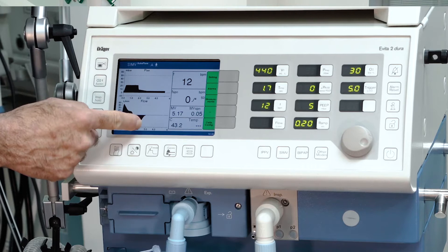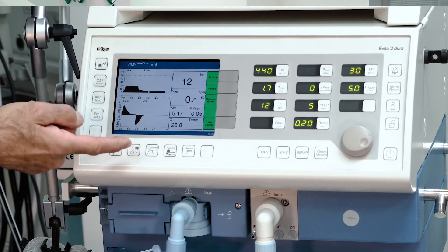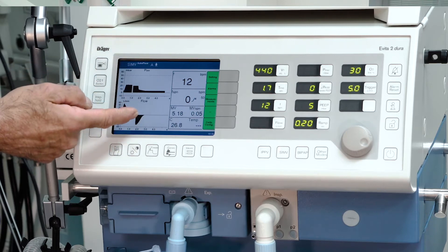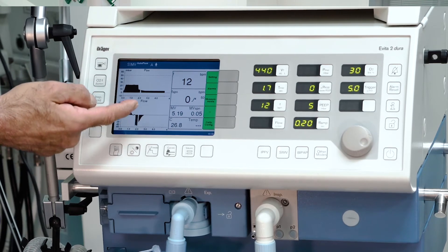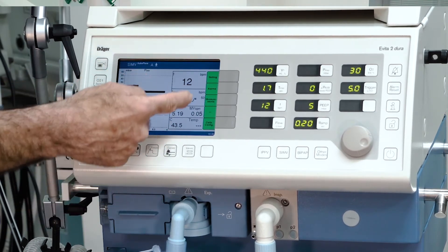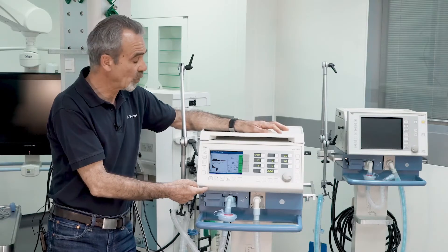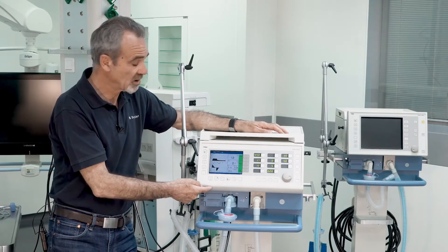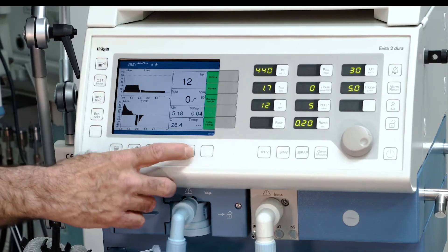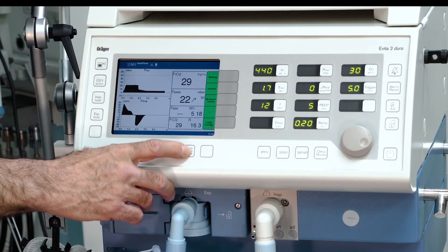Below you have your curves which could be, depending on the configuration, pressure, flow, volume, and if available CO2. Beside that you have your measured values which are available in three sets. You can toggle between the sets by pressing the parameter key.